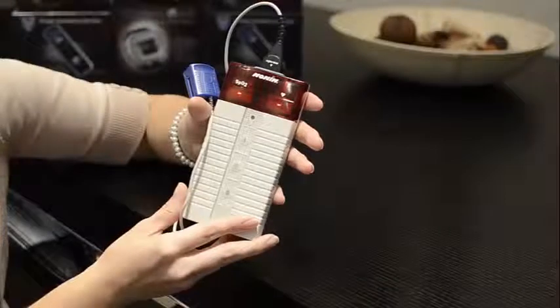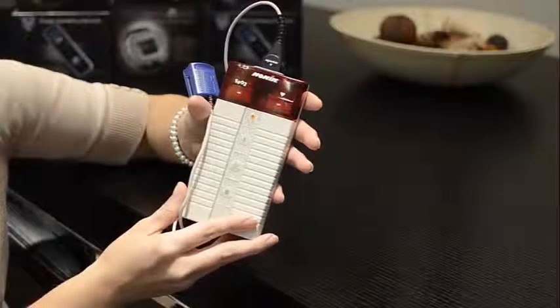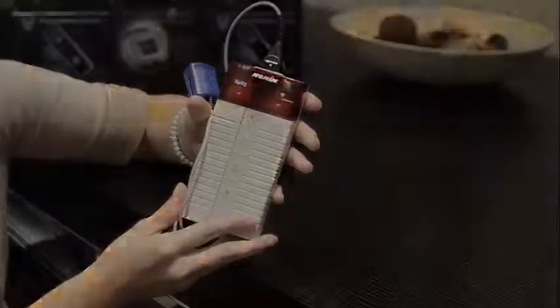This will be a tutorial video on using the Nonin 920M pulse oximetry device for your overnight pulse oximetry test.